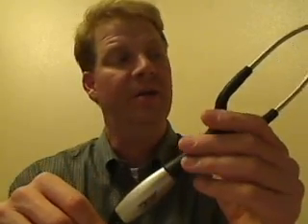I'm not so sure anyone who's not in cardiology or pulmonology needs an electronic stethoscope. I include this review because it's just interesting to know how they work, and I think before too long this kind of stethoscope may be the standard. But for now the electronics need to improve and the price needs to come down. You can buy more expensive digital stethoscopes — Littmann makes two of them, one in the $300 range and the other around $375 to $380.